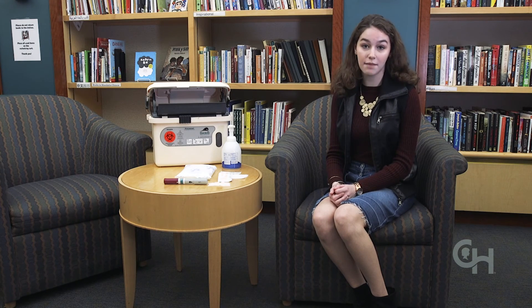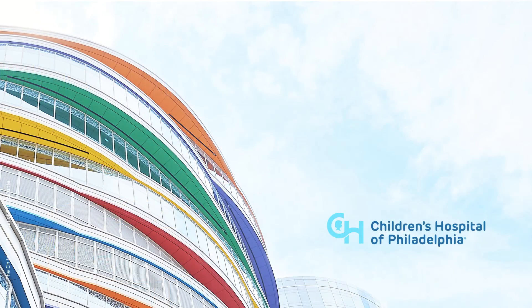You are all finished. You did a great job and you should feel very proud of yourself. Feel free to watch this video as many times as you need to feel comfortable giving your own medicine, and ask your doctor with any questions. Remember, it's always okay to ask an adult for help. Check out the Children's Hospital of Philadelphia website at chop.edu for more information and contact your provider with any additional questions.